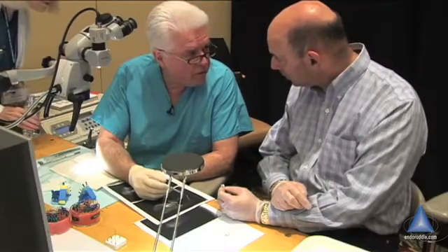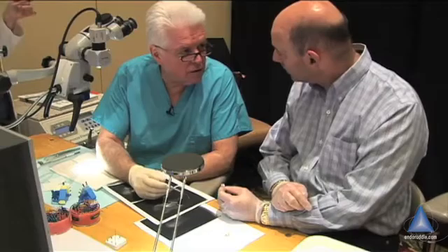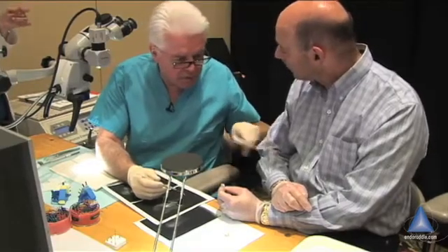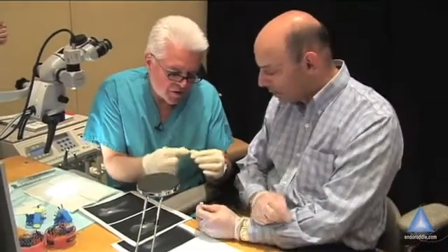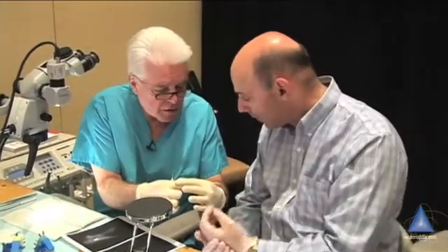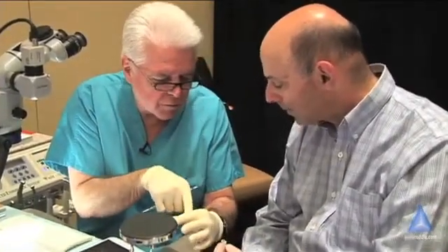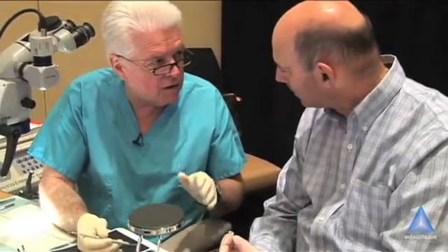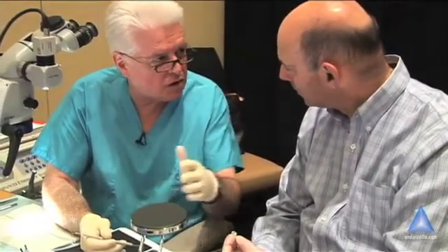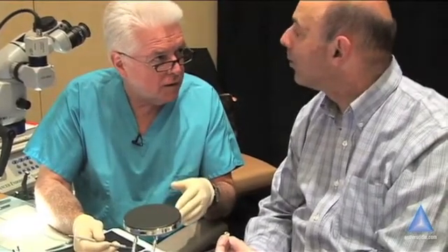So this one might be like the old days where we tried to bypass it — kind of old fashioned. You get in there with size 10 files and use viscous chelator, picking around the file. What you're hoping is that the canal is irregular and the file is binding on two walls, with a little bit of space lateral to the instrument. If you can get the 10 into it and start to slide past it, that can theoretically get you to the 15.